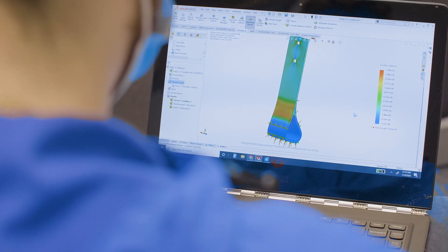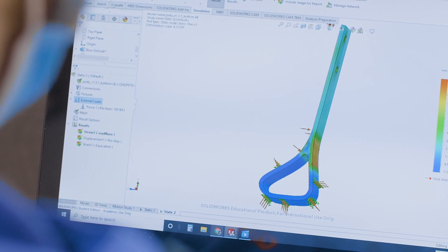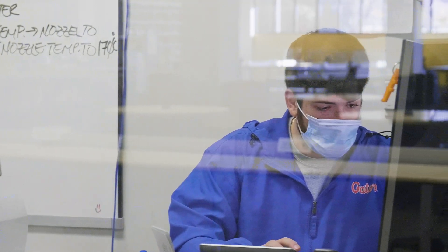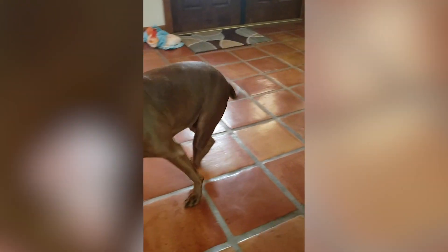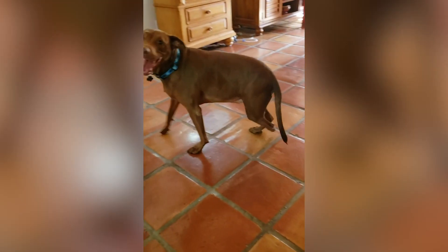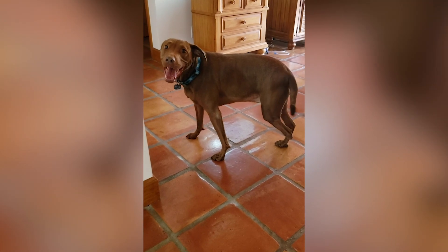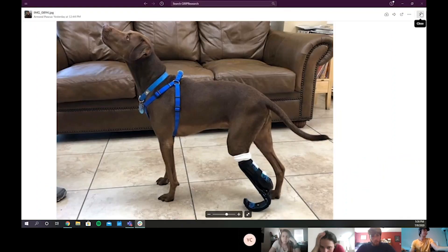Everybody on the team is very passionate about making a difference in a dog's life. This year we've been working with a canine out in Coral Springs named Jordy. We've been working on his prototype 3D printed prosthetic.